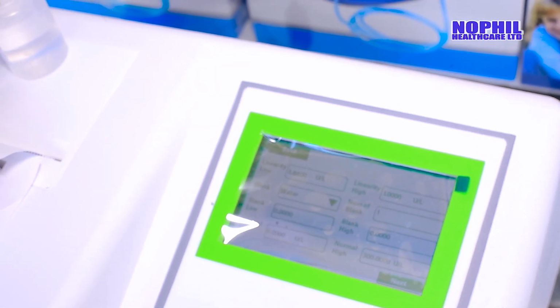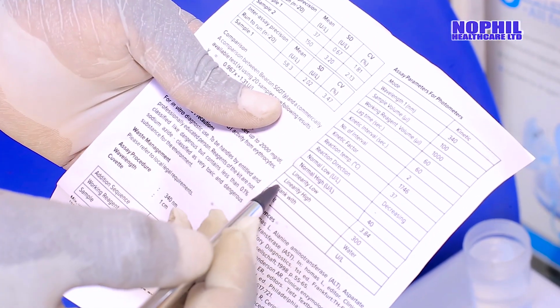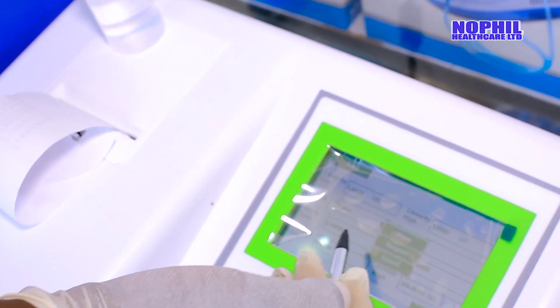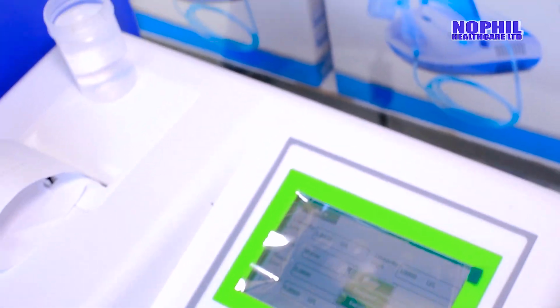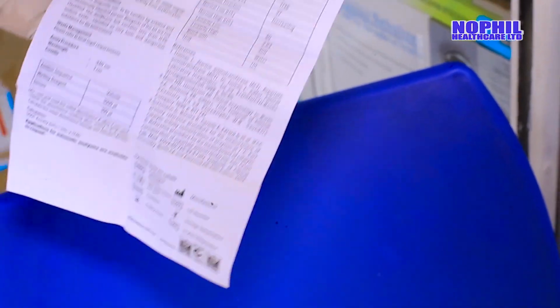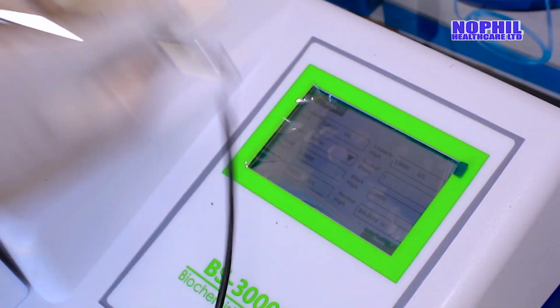Then there is also where, when you want to do zero setting, a blank test. It is indicated here, blank with water. As you can see on the machine, it is already blank with water. If we had another reagent which requires it, you just click there. You can click reagent, serum. But for this case of SGOT, the instruction manual indicates that we use blank with water. So we set on our machine blank with water. Then we proceed.